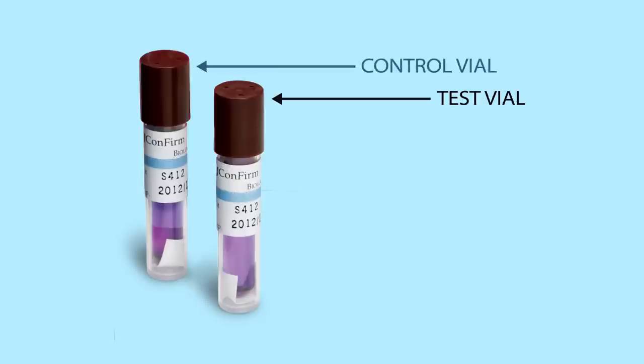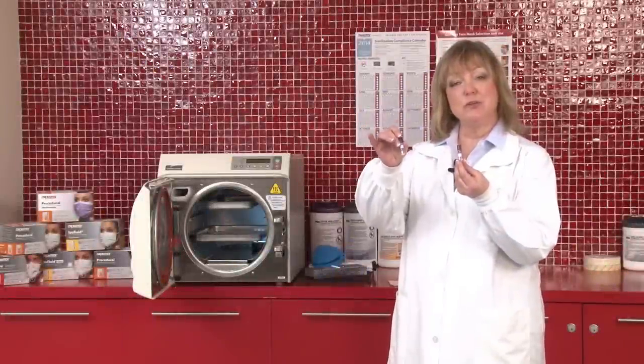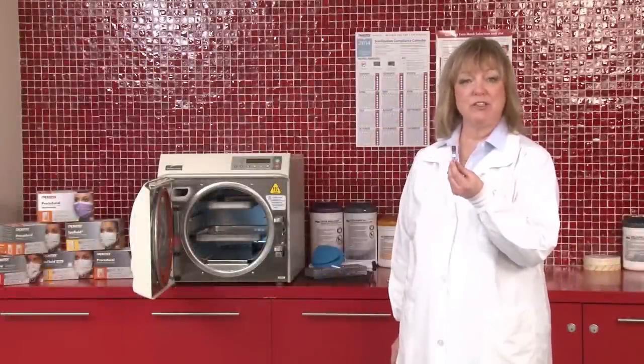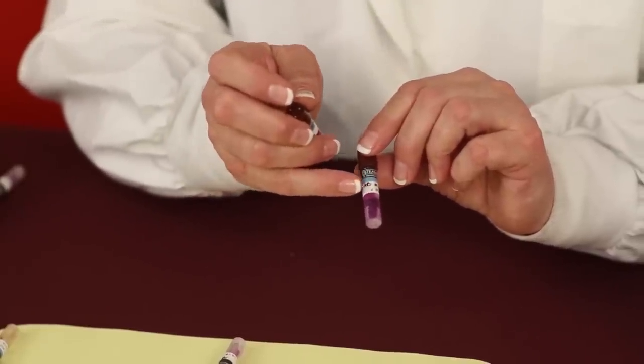One of the vials is going to actually be placed into the sterilizer as your test. The other one is going to be your control, so this one will not be placed into the sterilizer.